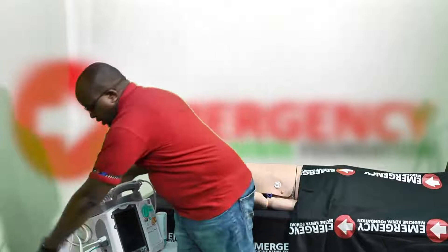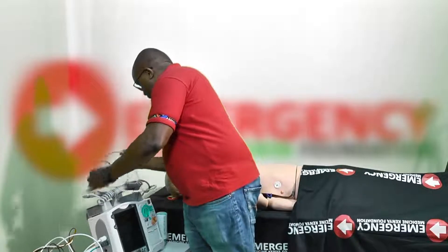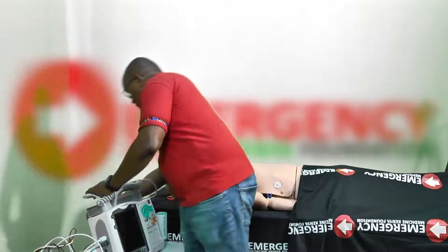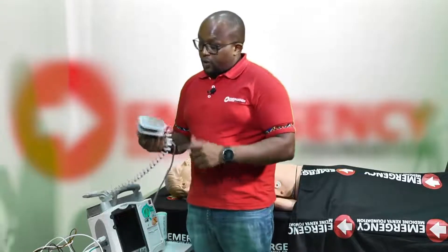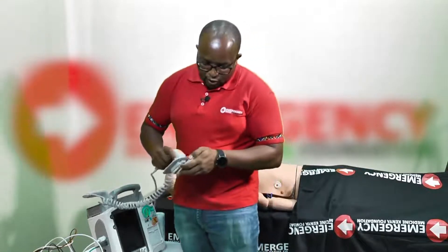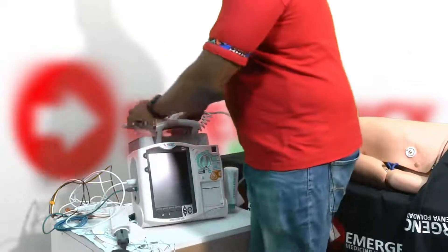I'm checking all the cables — they're connected. I check the cable to the paddles, then the power source cable, and I can see I'm already connected to power. I check that both batteries are in place. Then I check the paddles — I need to make sure they're clean and not pitted. Pitted means the metal has holes in it, which you don't want. By clipping off the attachment I can also check the pediatric paddle, making sure it's clean and not pitted.